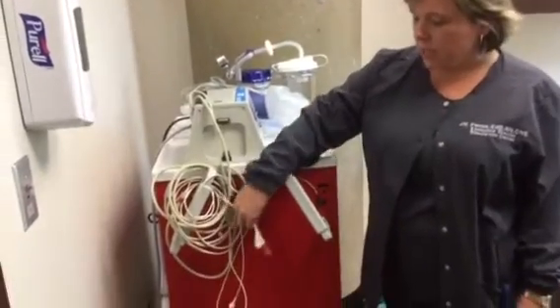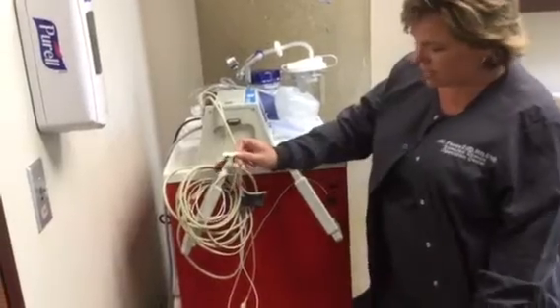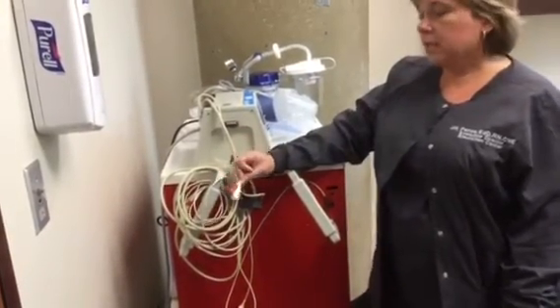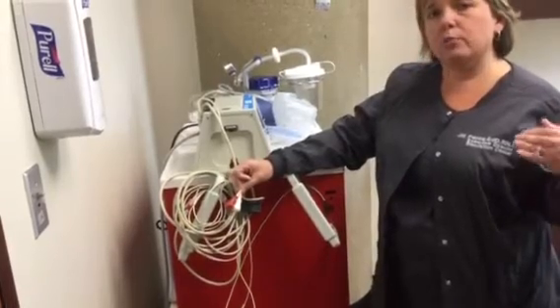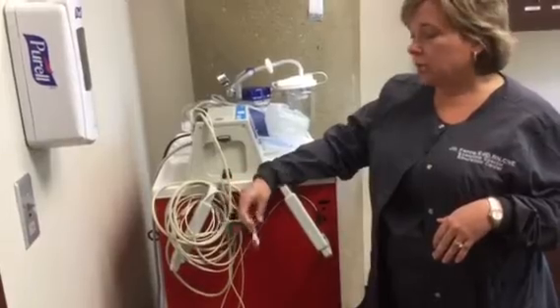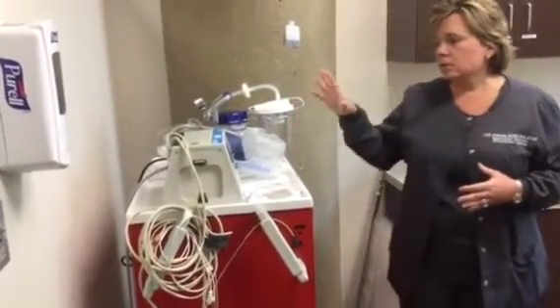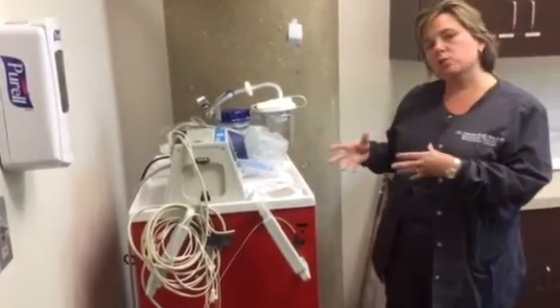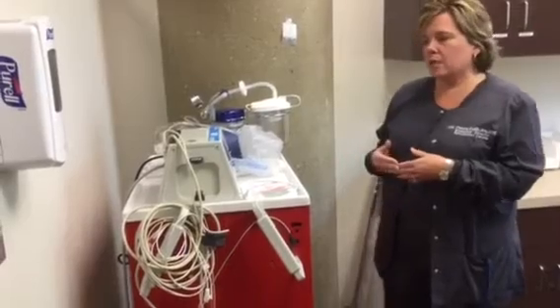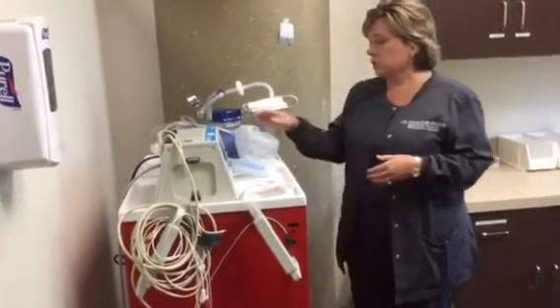It does connect to the mannequins a little bit differently. You have these wires here that are known as the hands-free, pad-free defibrillation kit. These will attach to some pre-mounted monitor areas on the mannequin, which you will see later on. You will be instructed on how to use this equipment inside your class instruction time if this is going to be needed in your simulation or your clinical.